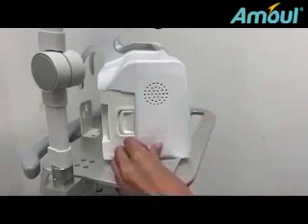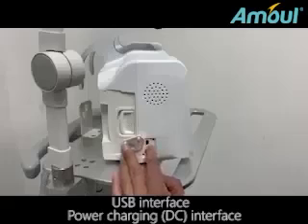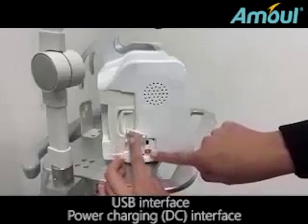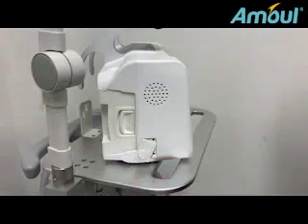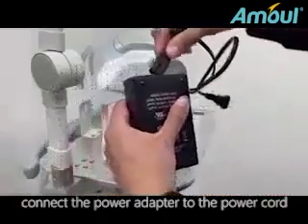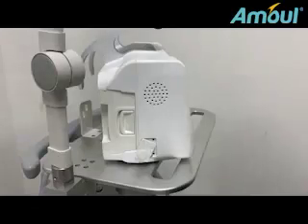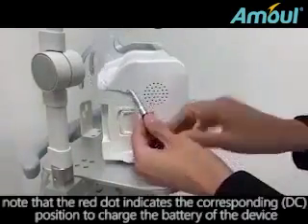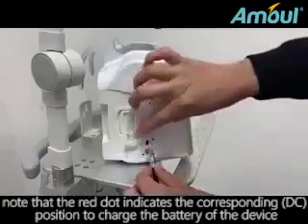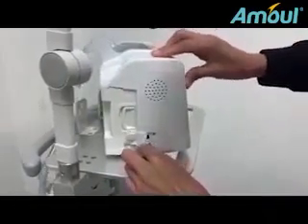Speaker. USB interface. Power charging, DC interface. Connect the power adapter to the power cord. Note that the red dot indicates the corresponding DC position to charge the battery of the device.